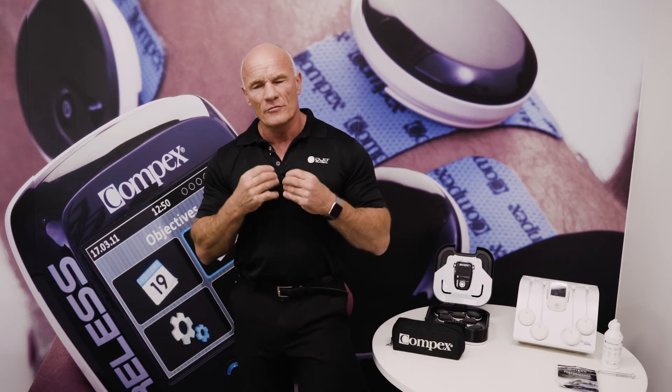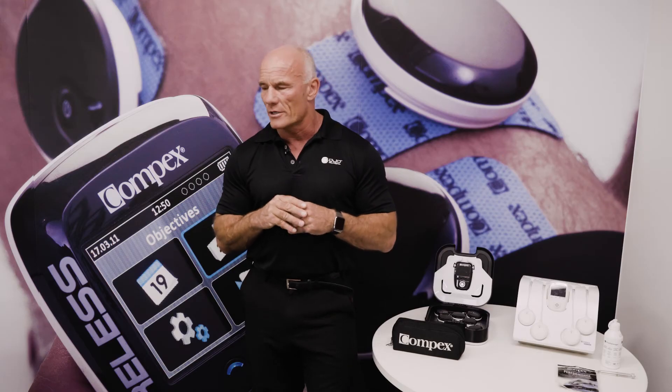AMI can occur due to the nerve going into shock, being traumatized during injury, or the nerve being affected by medication used during ventilation. There are all sorts of things that can affect it. I've also picked up three axonotmesis cases around the shoulder using the motor point pen, and I'll share those experiences in the video.